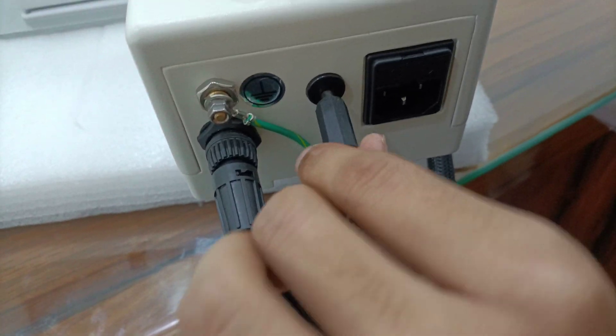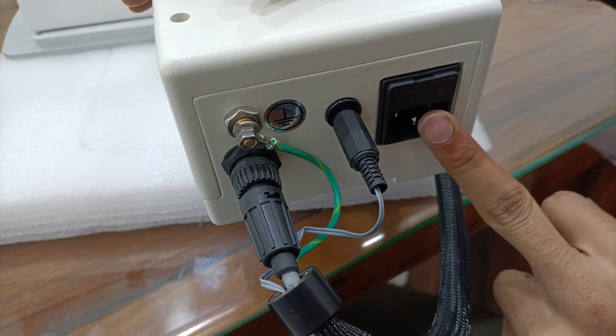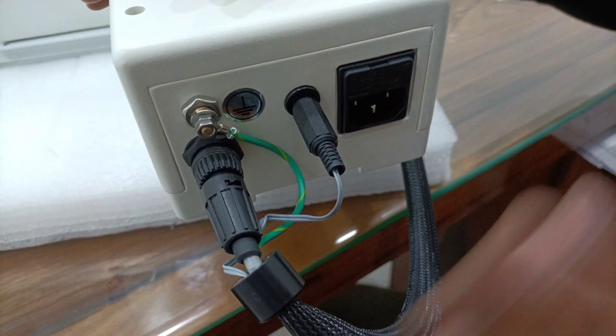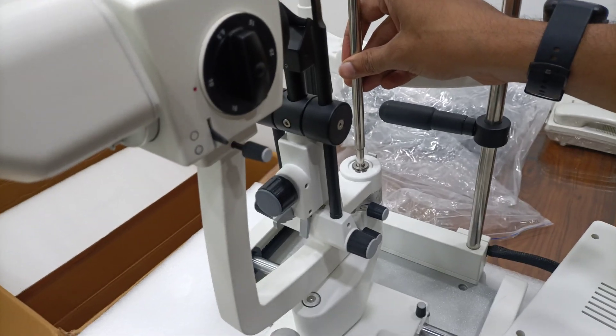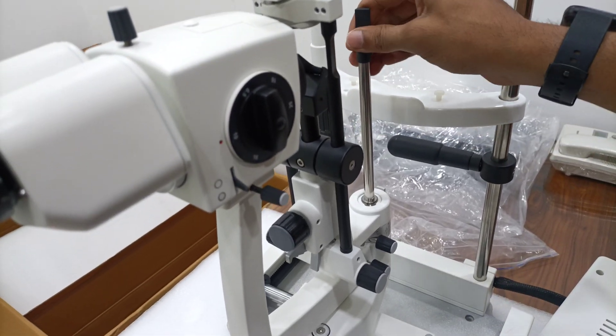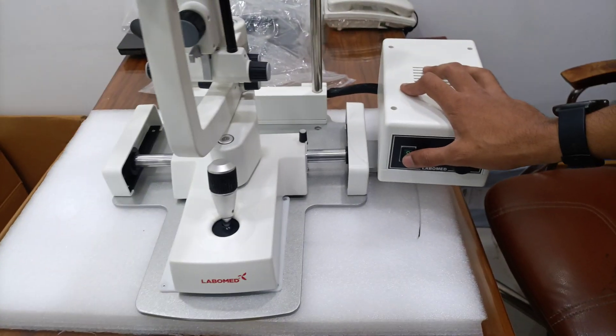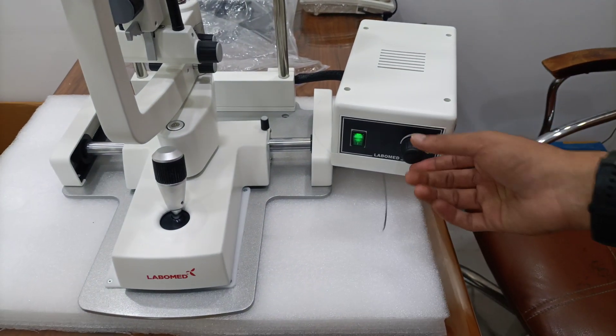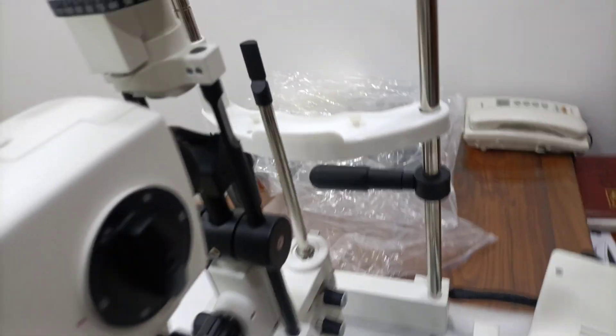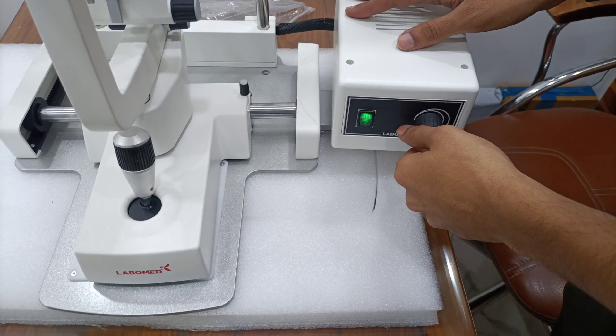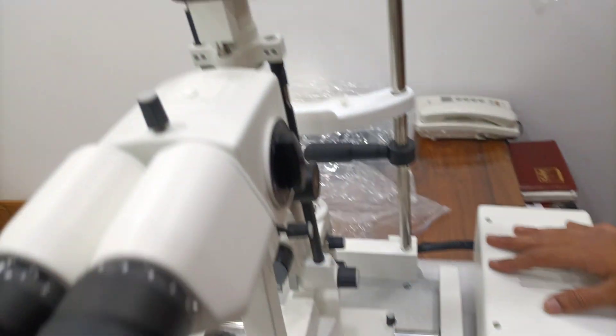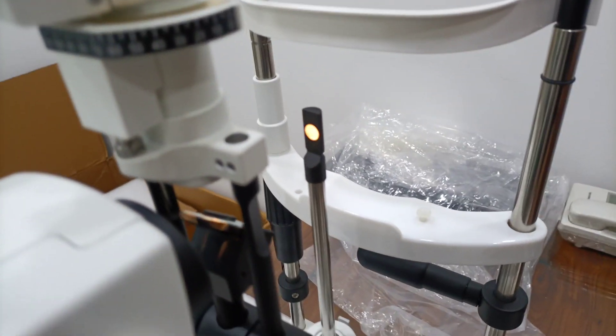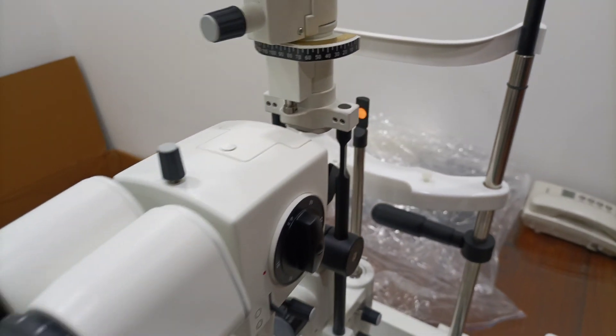Third is LED light. Now here will power cord will connect. Then our slit lamp will start. Fixation rod. On. Illumination control by transformer.